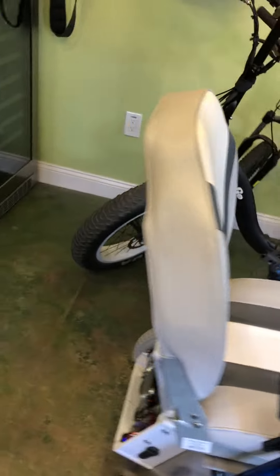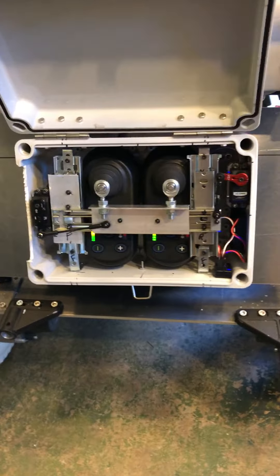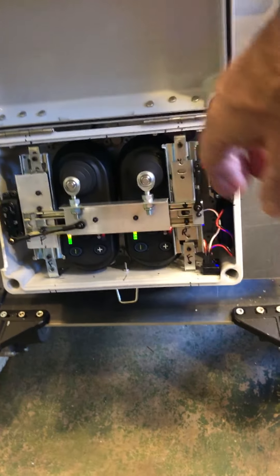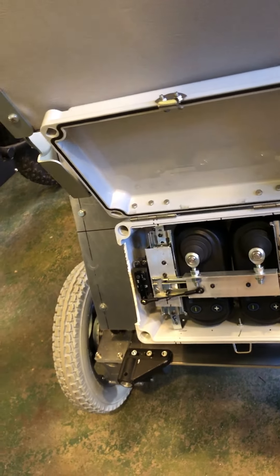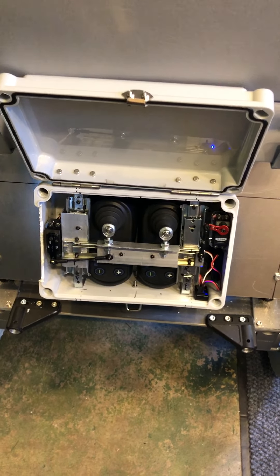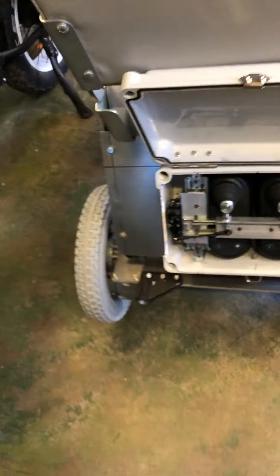And all of that is connected to a dual servo sliding. To show you how this works, I'm going to turn off the power and come back over here and release this. Now I pull forward, backwards, left, right.